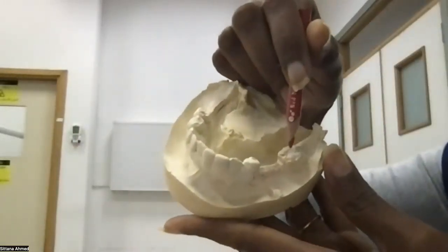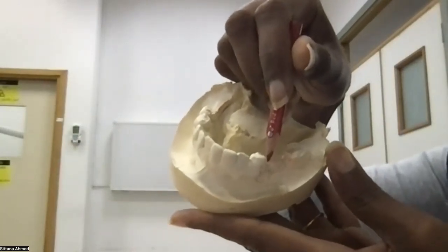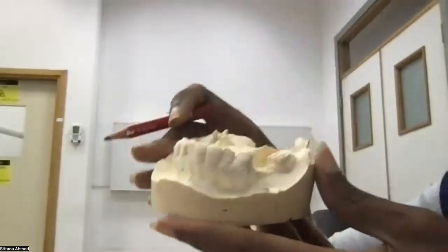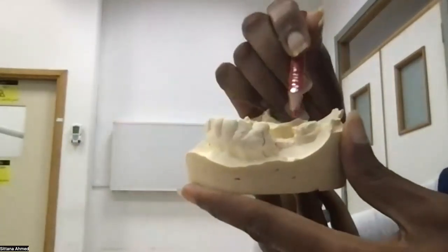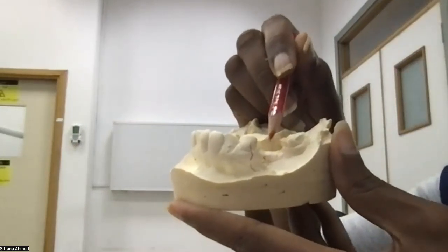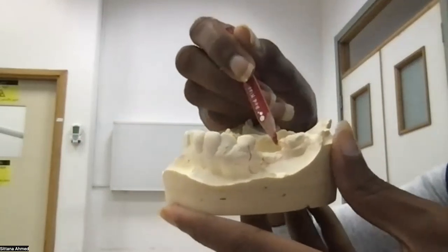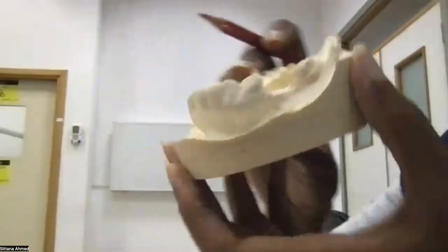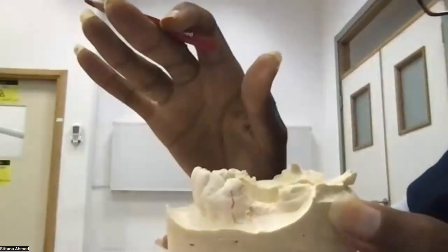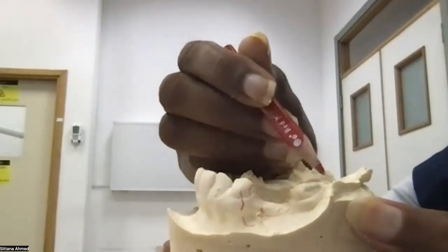This is a molar, which is next to a tooth which is missing. So what happens? You can even see it. It's mesially tipped. When it tips mesially, you will find that there are no undercuts except here on the lingual side of it. So you have an option. Because of this scenario, it's always better to put a ring clasp.